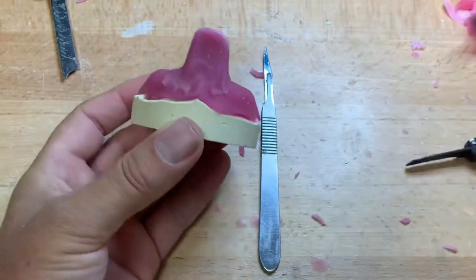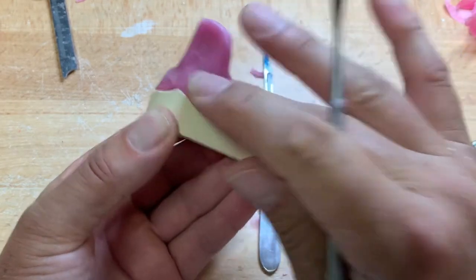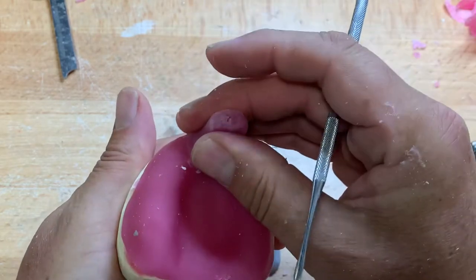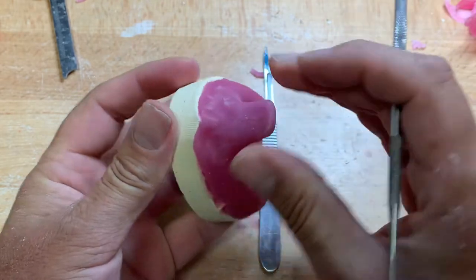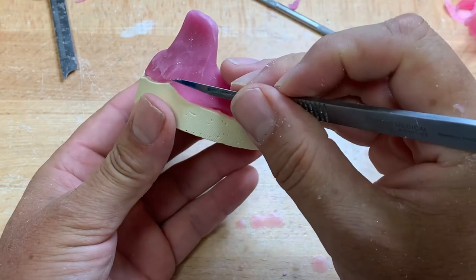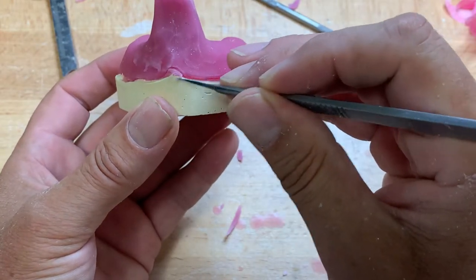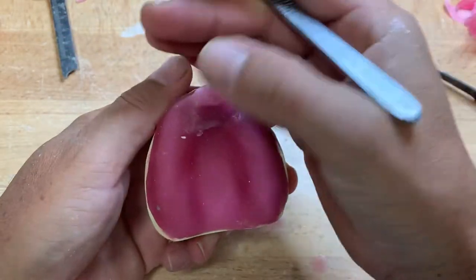I left myself a little bit of tray here to trim and give it some shape. This area here you can blend in with the end of your number seven so the light-cure doesn't look like it was just stuck on — we want it to bond nicely and not break off. This tray is going to go in and out of the patient's mouth frequently. The borders need to be trimmed at 90 degrees. This is going to go into the light-cure box — different types, pretty much UV light — one minute on this side, one minute off the model.